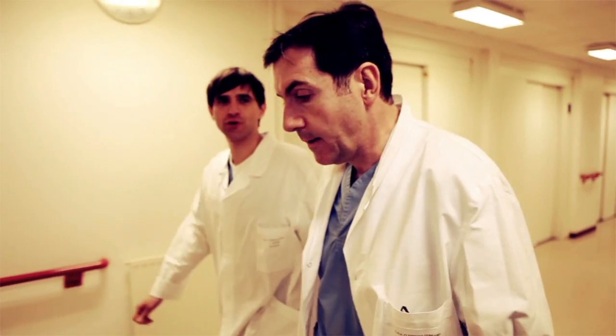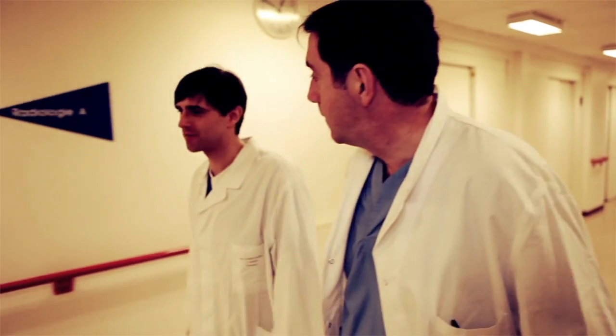Professor Le Maire is a very extensive user of our product iPlan. He is acquiring all these electrophysiological data as well as intraoperative stimulation data in order to really do the best planning possible.